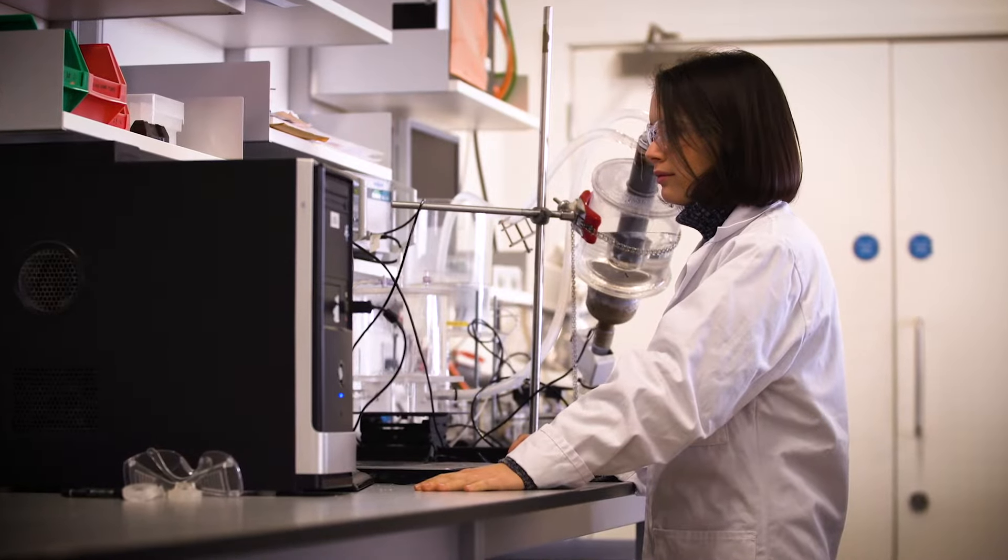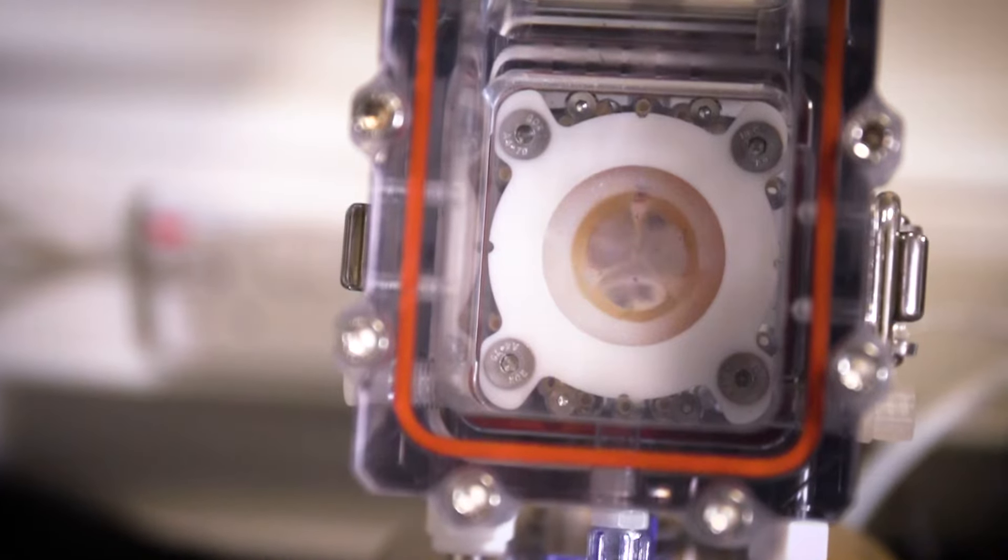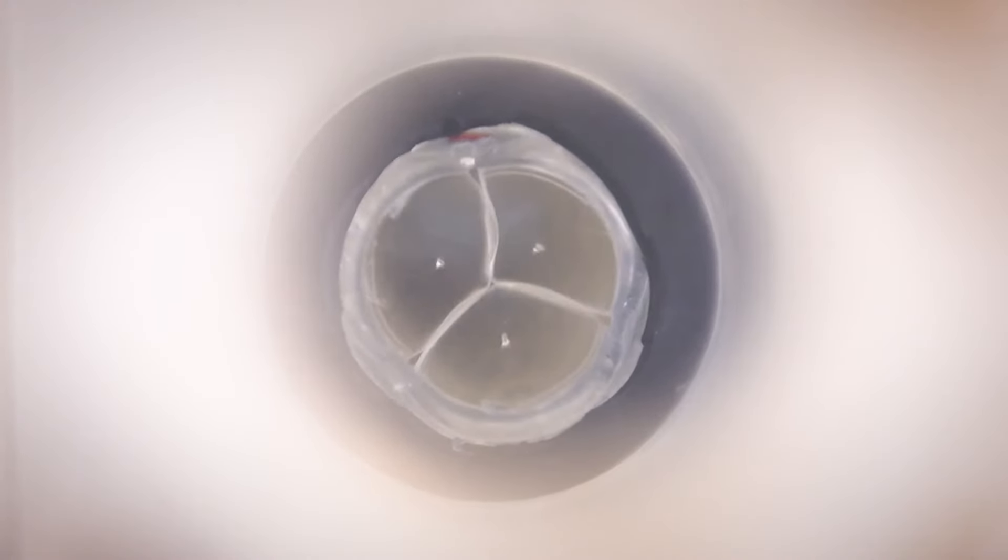We've done our pulse duplicator hydrodynamic tests. We are undergoing our fatigue tests, and in two months' time we will be implanting our valves in animals.